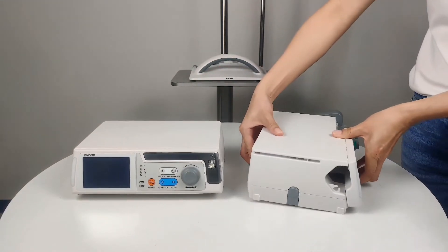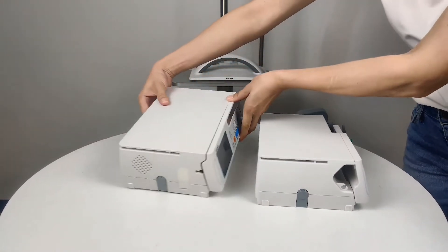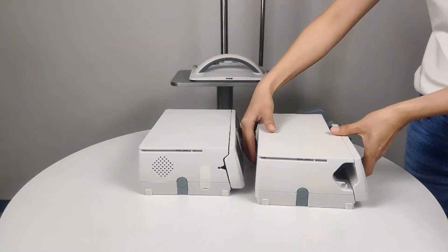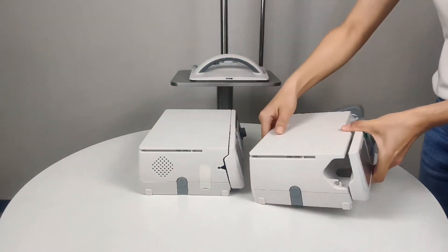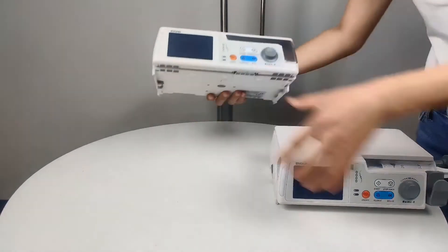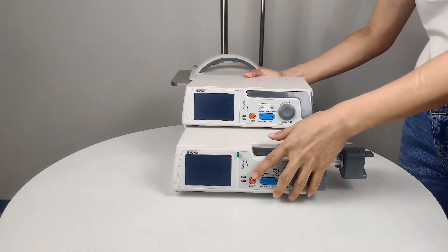Each pump has a guide slot. We can stack the pumps this way. You will hear a sound when locked well. Syringe pump and infusion pump can be stacked freely.